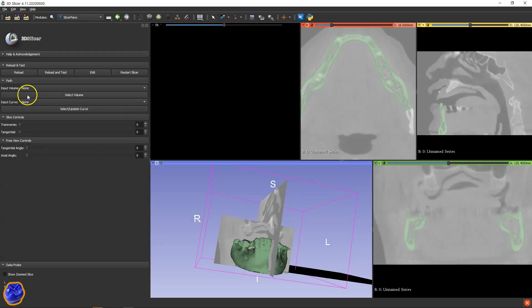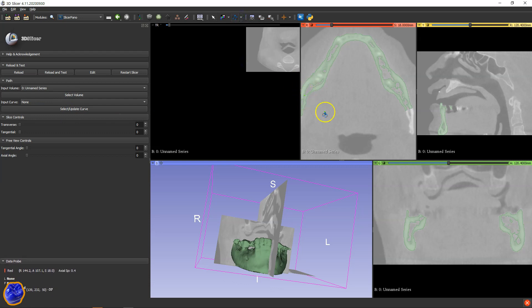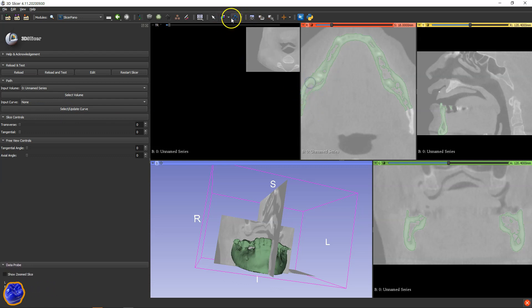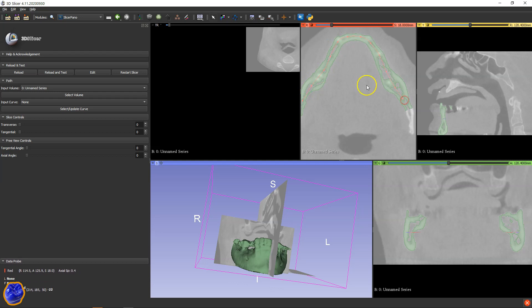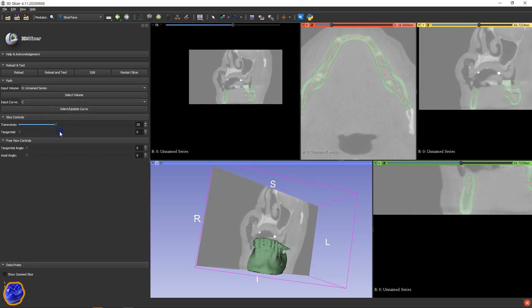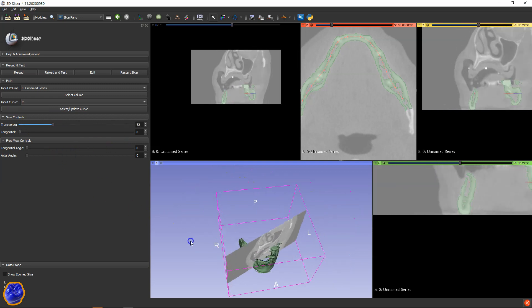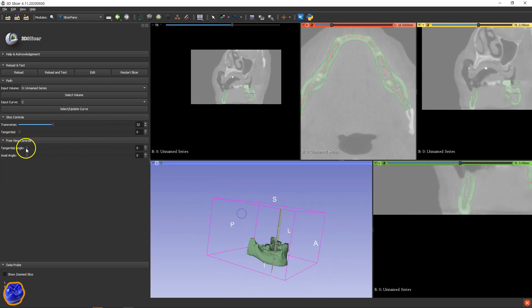And then we're going to go to the pano add-on. Click on open curve and draw a curve. This is so that the slice can follow this curve. Select it and here we go — it follows the curve perfectly.